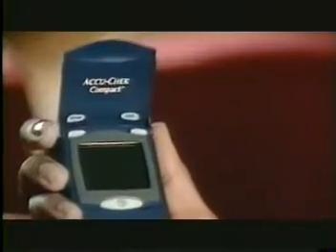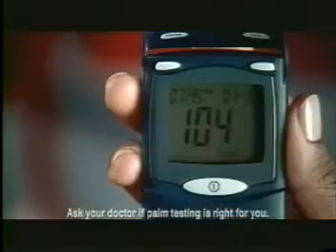But I don't feel like a pincushion because this is my meter. The AccuCheck Compact System eases pain others cause. A 17-strip drum takes the pain out of struggling with strips. You can also test on your palm instead of your sensitive fingers.